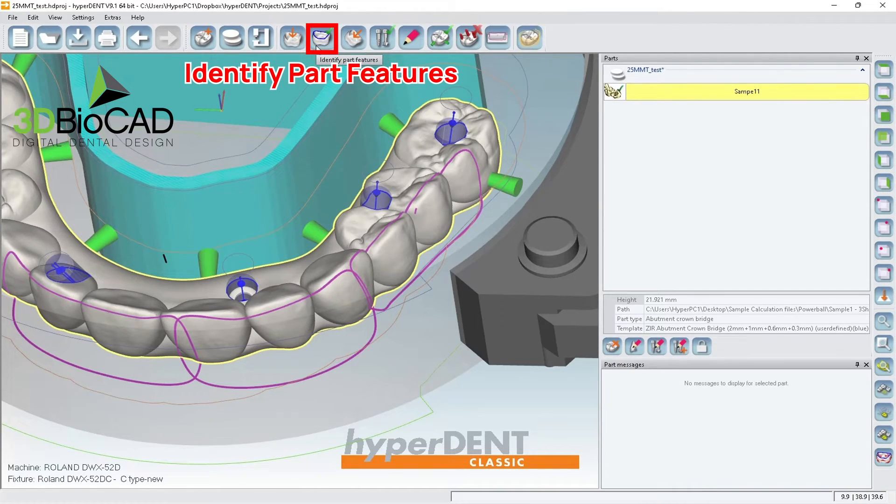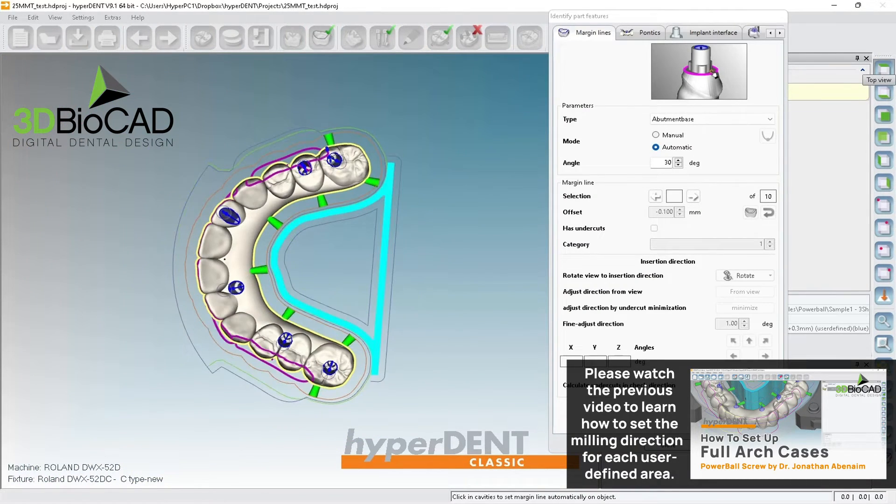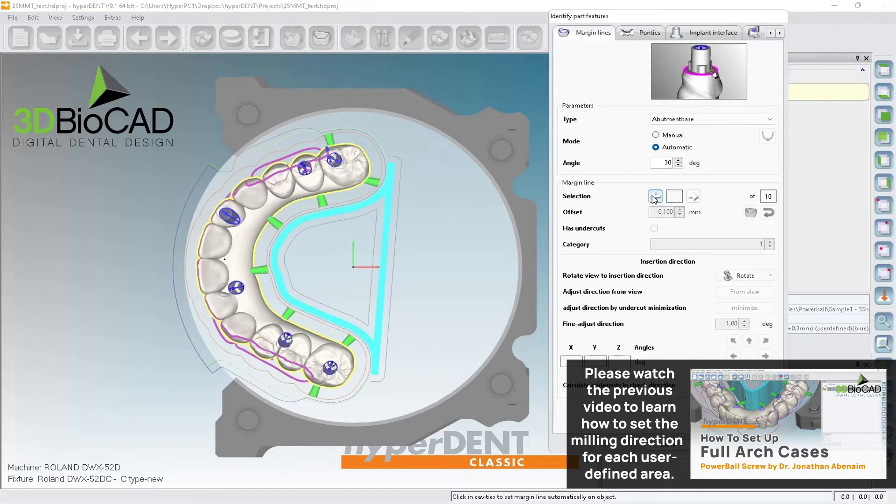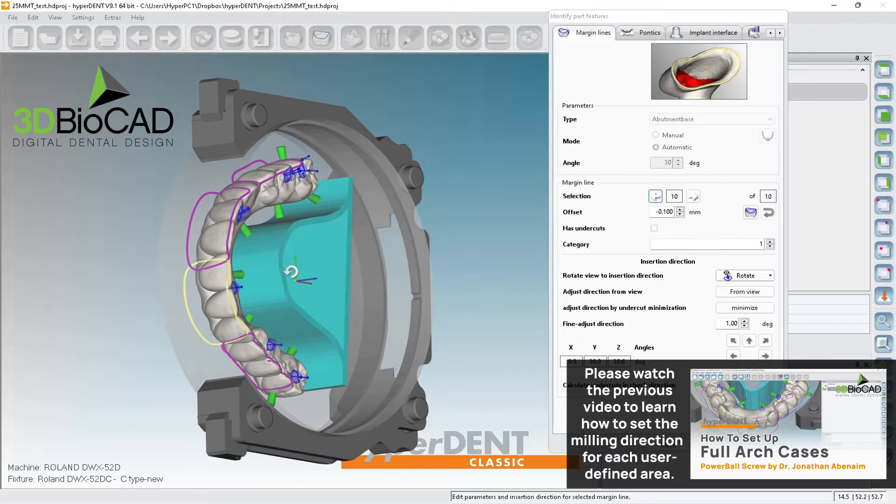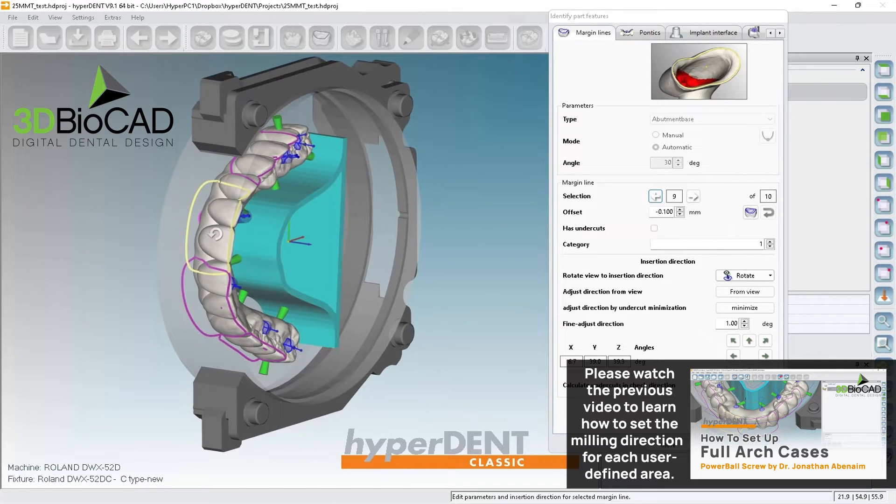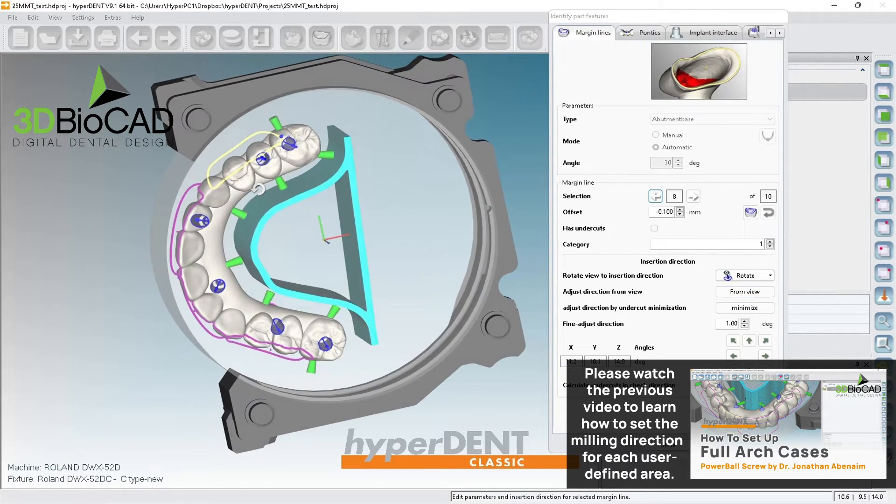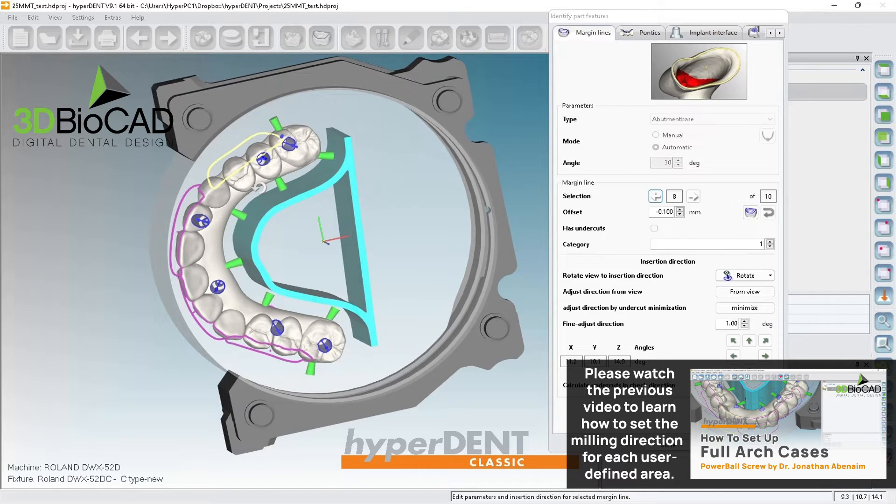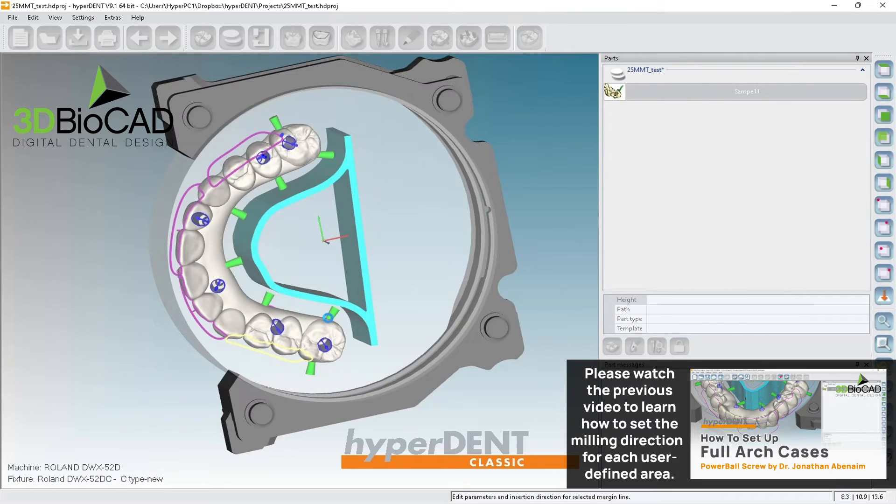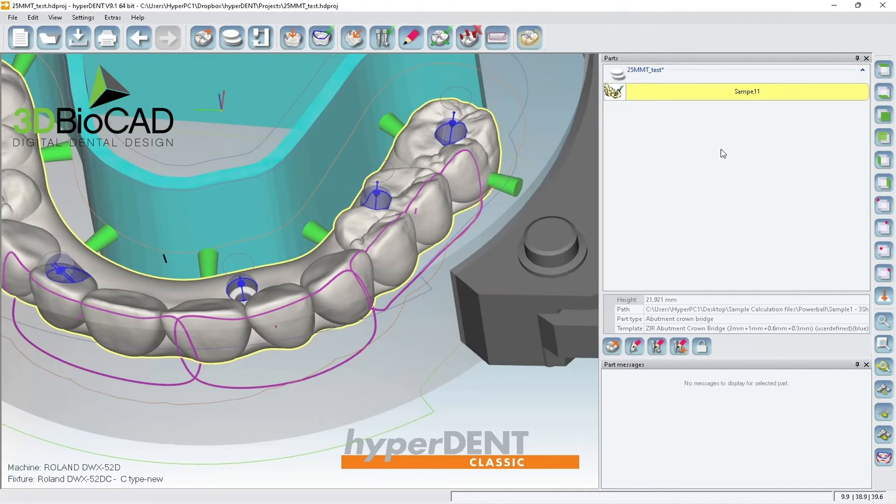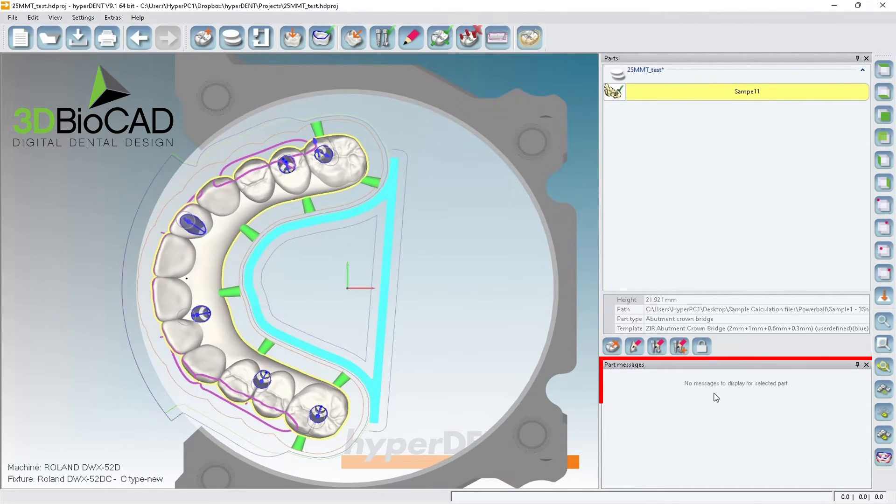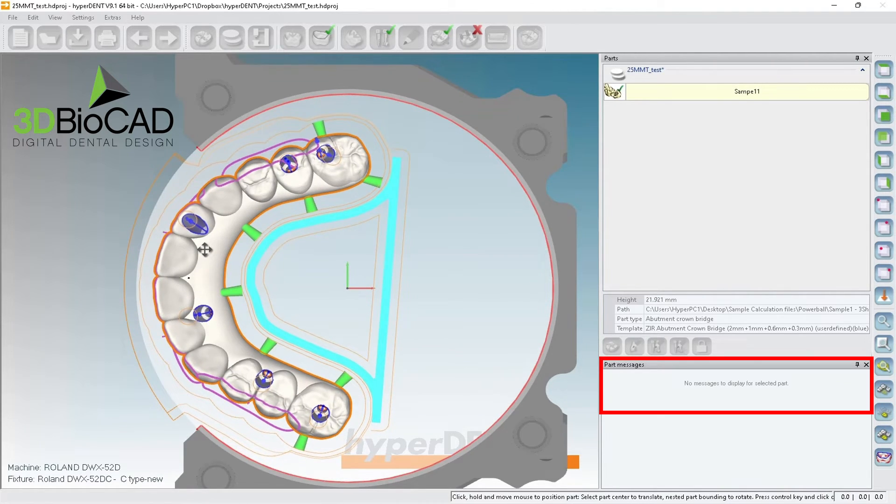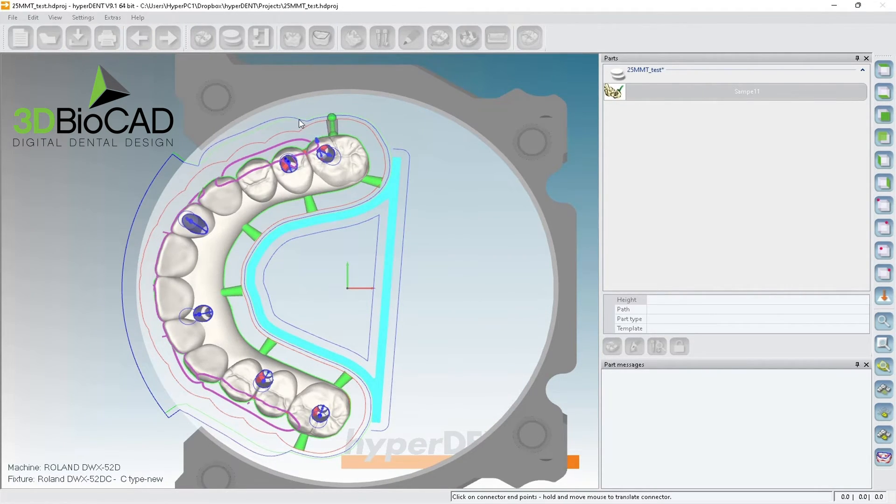All right. So going back to identify part features. We want to see if, see like this one, it's barely hitting the fixture. So I'm going to reduce a little bit. So this one 39.6, so I can tilt more. I have 14.52, that's perfect. 39, so I can mill like this. 58, that's fine. So like this one, 14.9. So I'm going to reduce a little bit. 14.1, a little bit less. 13.6, perfect. This one was perfect. So no error messages. So that's perfect. It's not hitting at either side of a fixture. So this is perfect.